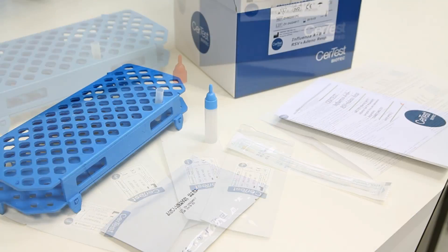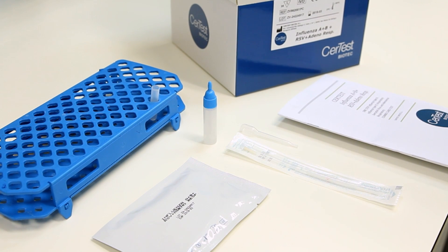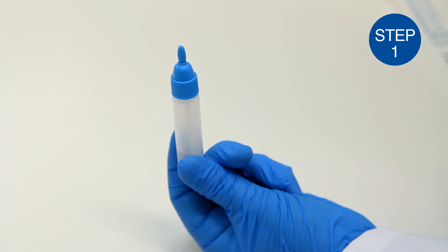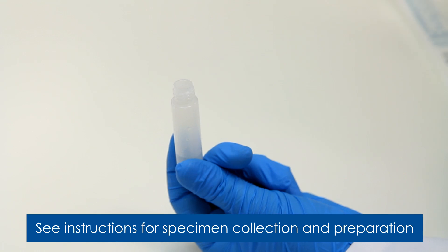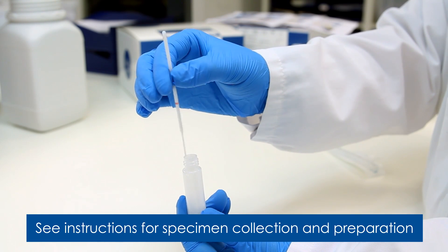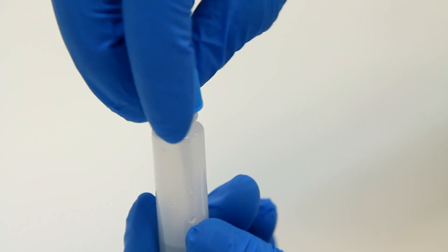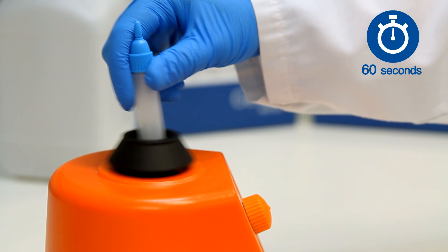The test procedure for Influenza A, B, RSV and respiratory adenovirus is as follows. Step 1: After collecting the specimen with the swab provided in the kit, take out the cap of the sample collection tube, introduce the swab and mix the solution by rotating the swab vigorously at least 10 times. Close the tube and vortex or mix for 60 seconds in order to assure good sample dispersion.